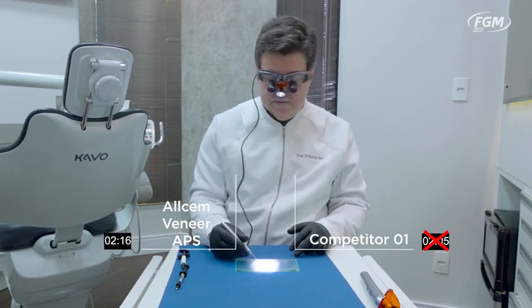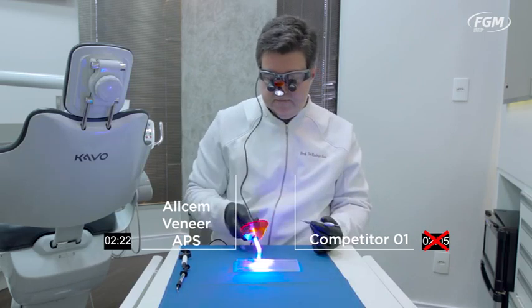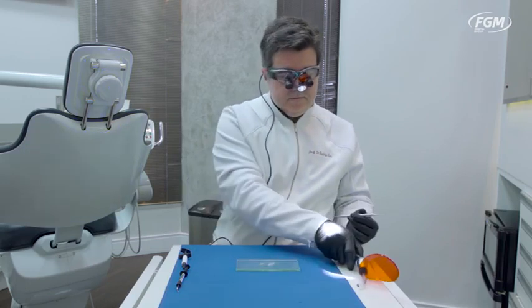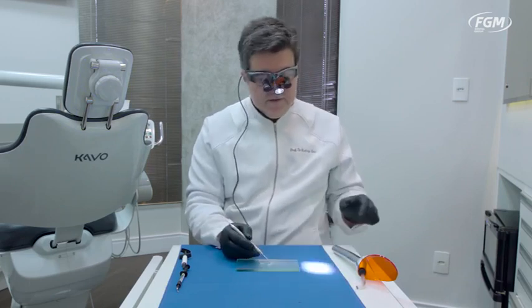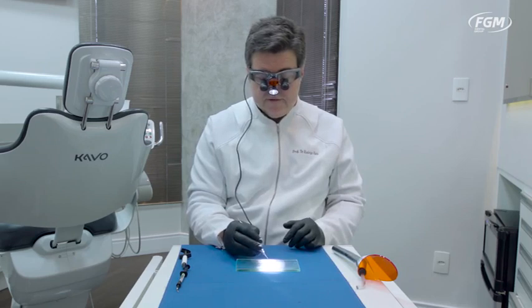The other cement tends to crumble, while over here the APS cement is still nice. Zapping it with the light — I need to zap it, but it's already all cured. The other cement surpasses its working time under the well-illuminated field.